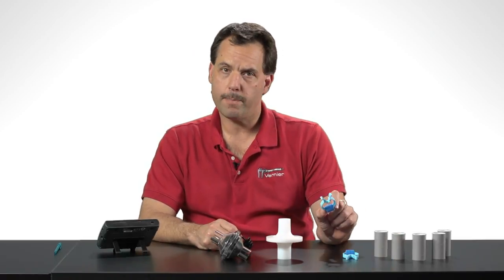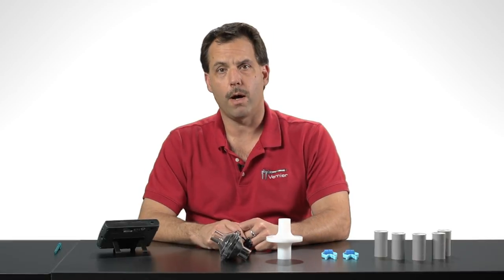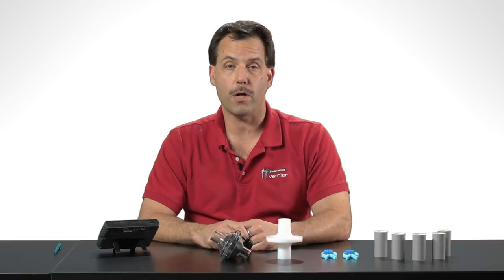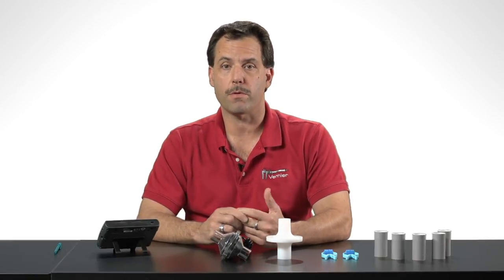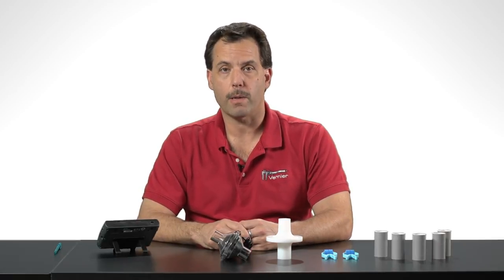And then we also have these disposable mouthpieces that get attached to the bacterial filter. We also have these nose clips. And the reason why you want to use a nose clip is because you don't want the subject or student breathing through their nose. They're supposed to just be breathing through their mouth to look at tidal volumes and lung capacity.